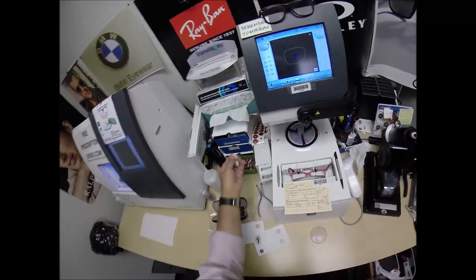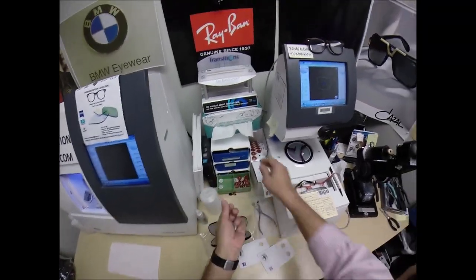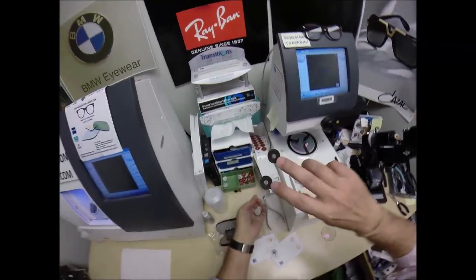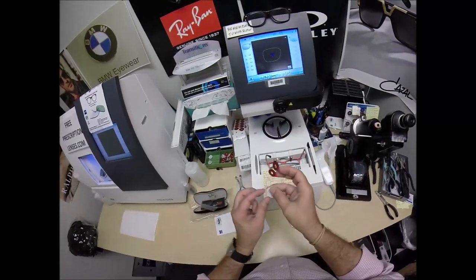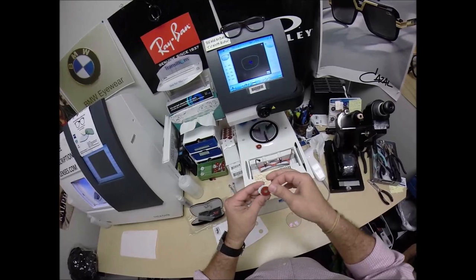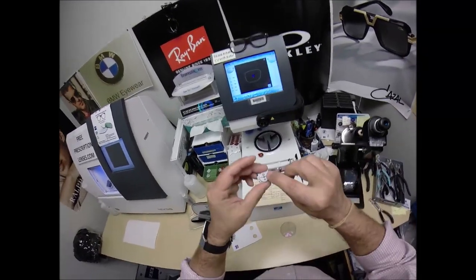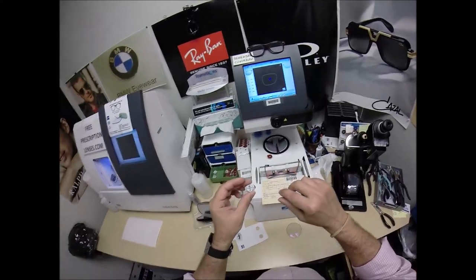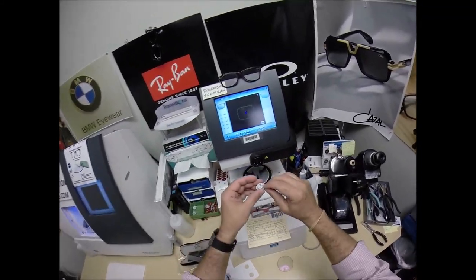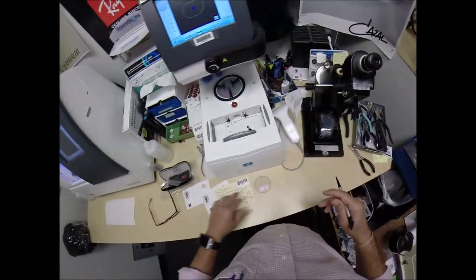This is a block — or as I like to call it, Jenny from the block. I need to attach this to your lens while they are cutting, so I'm going to use a double-sided adhesive sticker. The black side is the sticky side. Stick this one onto the first one, place it on the platform. Pull the paper away to make the black side sticky. That silver button on the back is a magnet. It's going to do its job twice: first, it attaches itself to another magnet in the arm. Then I can take this out — it is no longer needed.